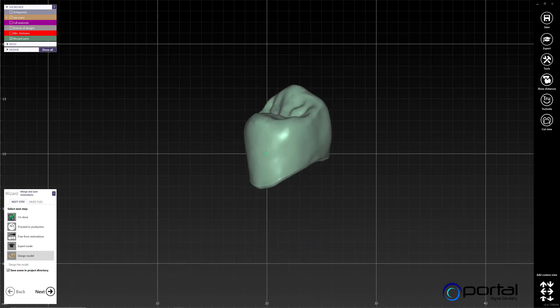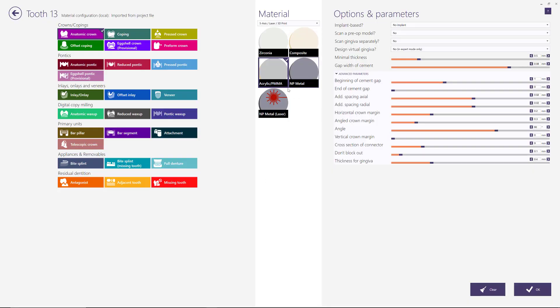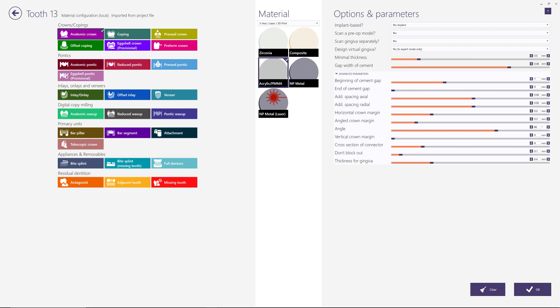It's quite a simple process. A lot of people worry about having to go back out and restarting the case from scratch — that is not necessary. You just have to change the parameters that vary between the two different materials, and that's it.